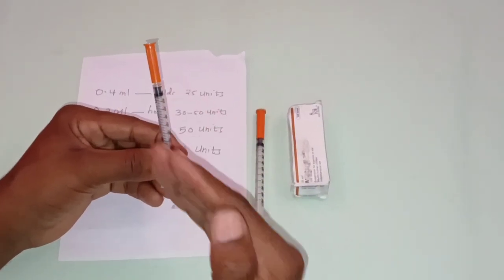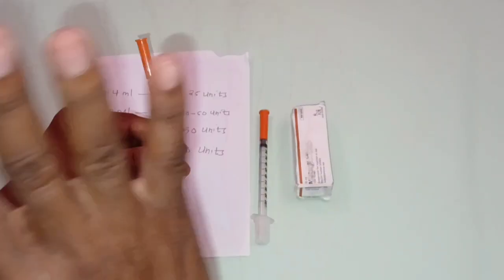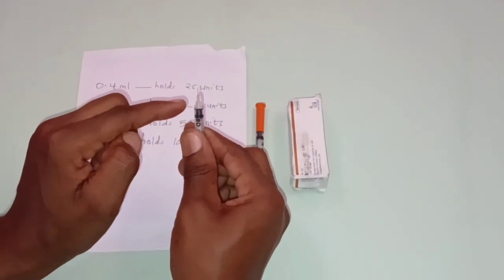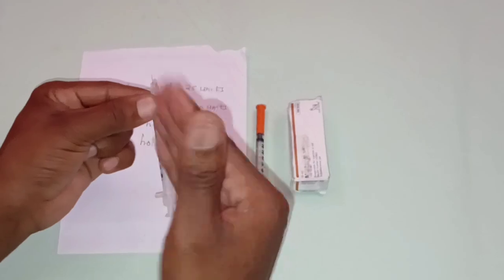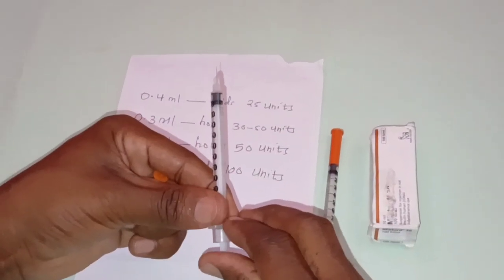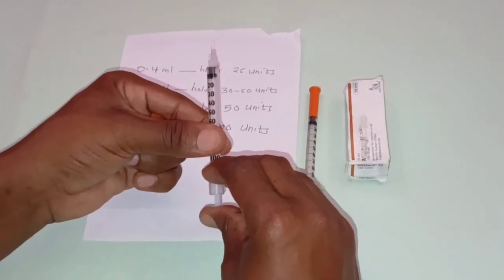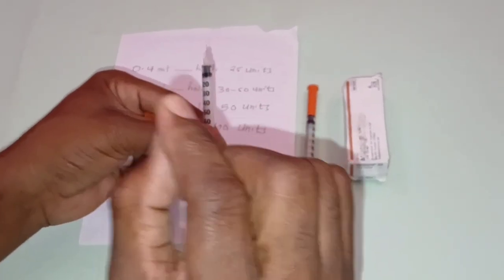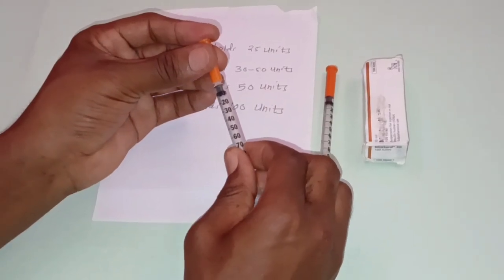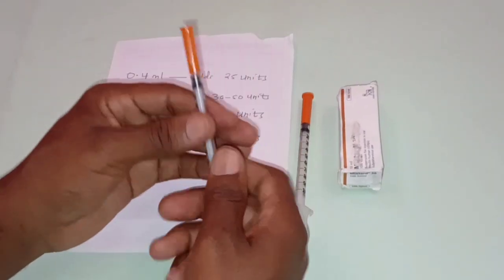Number one, you have to consider the patient's comfort, because the insulin injection should be painless. The needle should be very small, short, and very thin. So the higher the gauge number, the shorter or the thinner the needle is. Insulin syringes generally range from 28 to 30 gauge. Therefore, you have to select the best size according to the dose of the injection. Generally, insulin injection is painless, so you have to consider that.